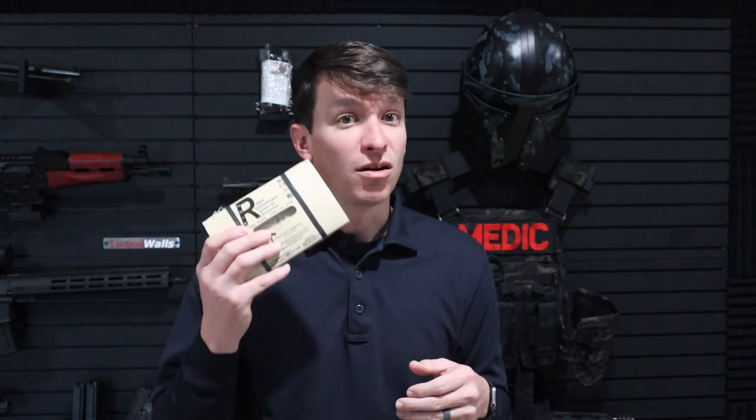This is the RISE System — R-I-S-E — from TacMed Solutions. It's the Rigid Immobilization System for Extremities. It's a splint, similar to the SAM splints, aluminum splints that you guys are probably familiar with. We can use this to splint fractures, dislocations, things like that in the arms and legs. Also combined with their Soft T, we can use this for a pelvic binder, which is awesome. This is going to save space and save weight in my kit.